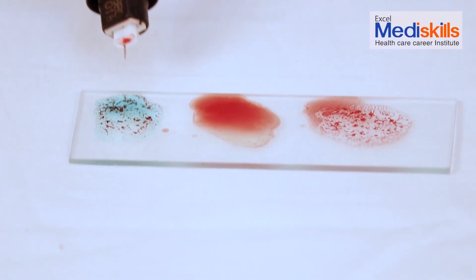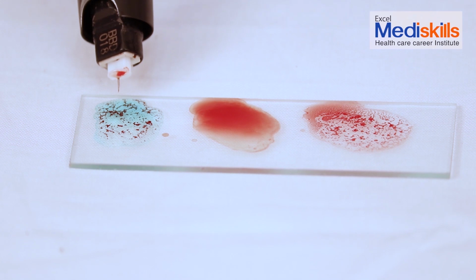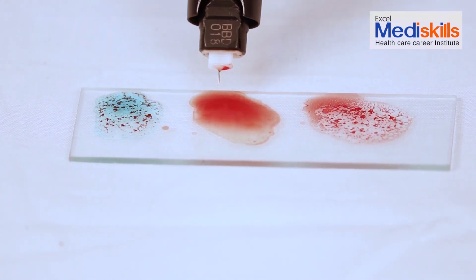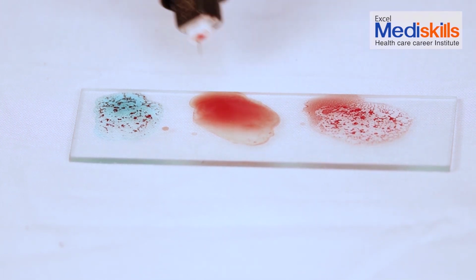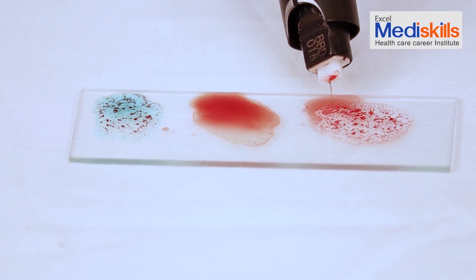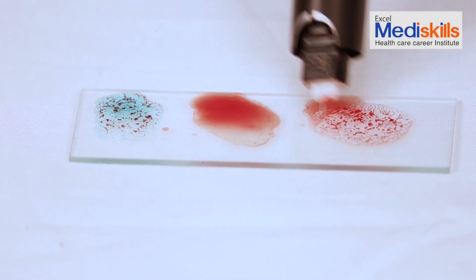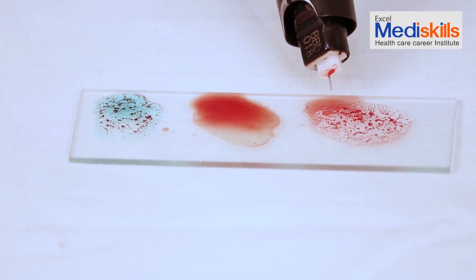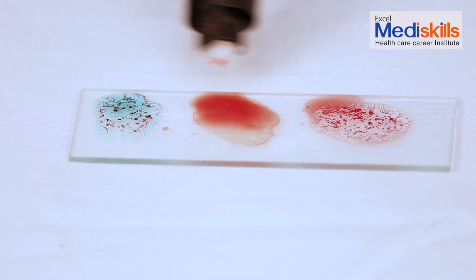After mixing with this needle, we see here in the first blood drop, that is where solution A was given, there the blood has clotted. In the next blood drop, where solution B was given, there is no clotting. In the third blood drop, where solution D was given, there also we see coagulation or blood clotting. That is, we see clotting or coagulation in A and D blood drops. There is no clotting present in B. That is, the blood group is clearly A.